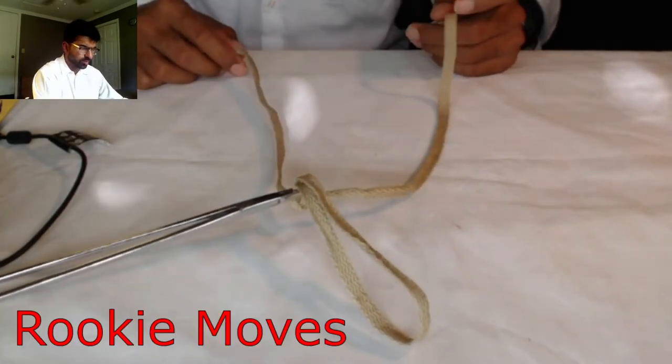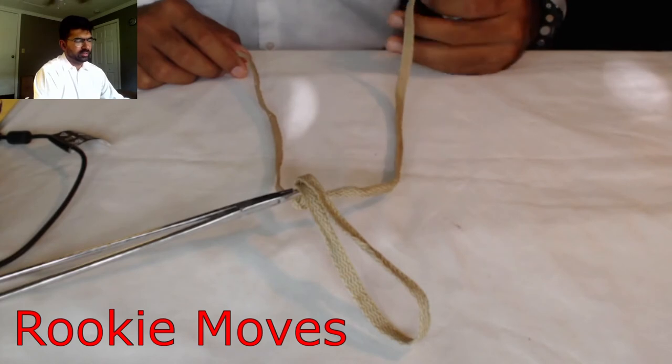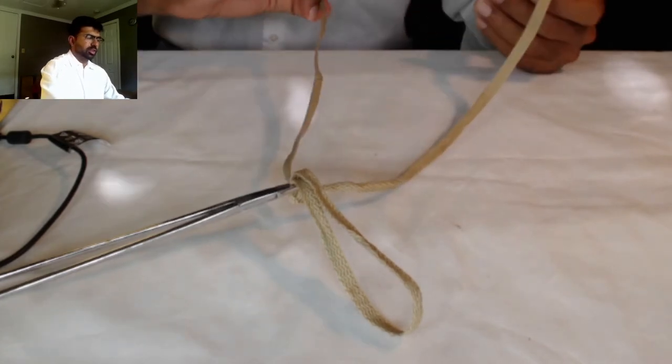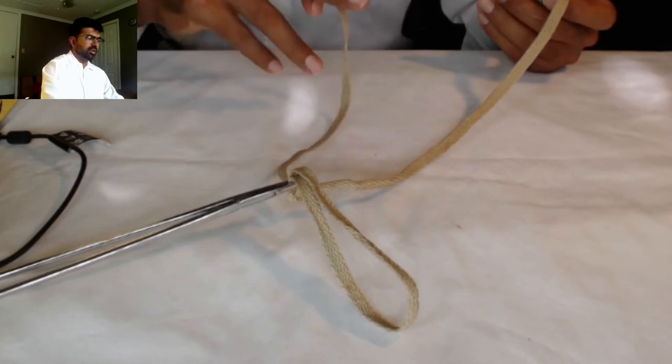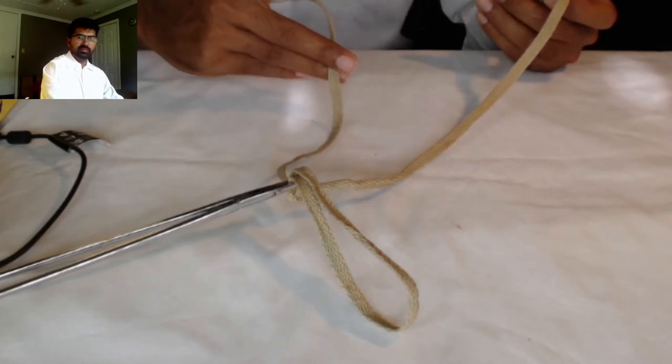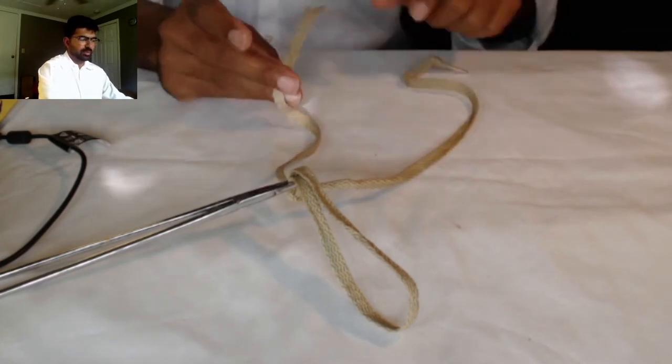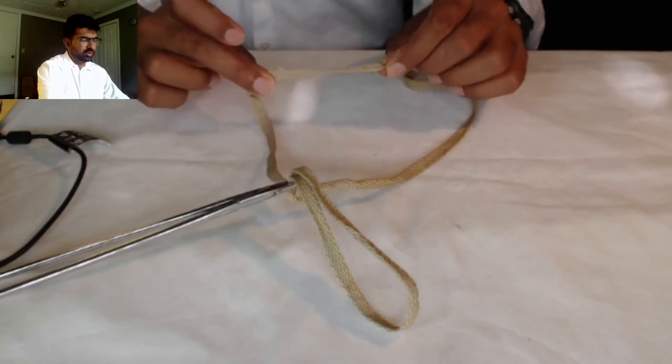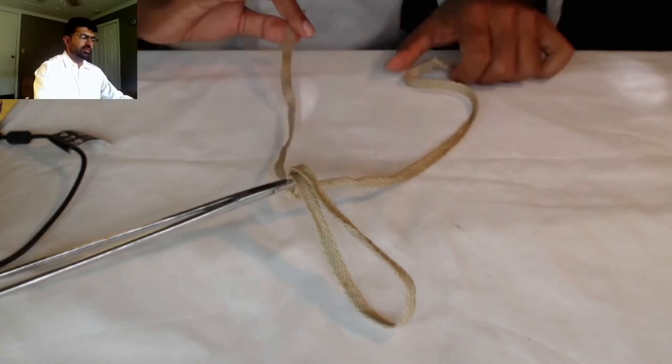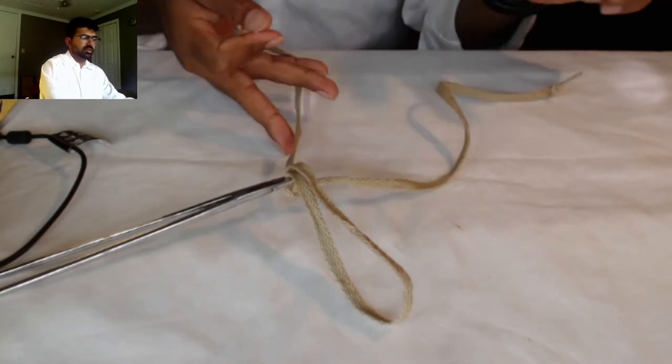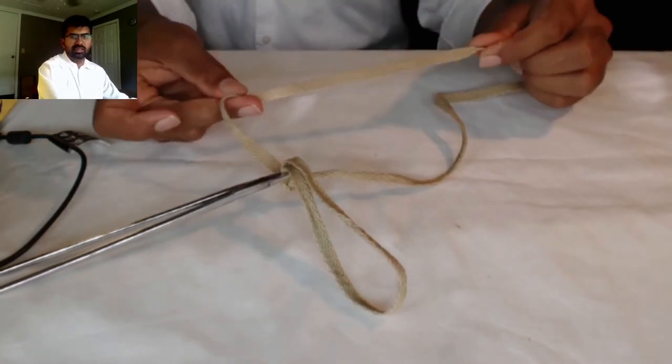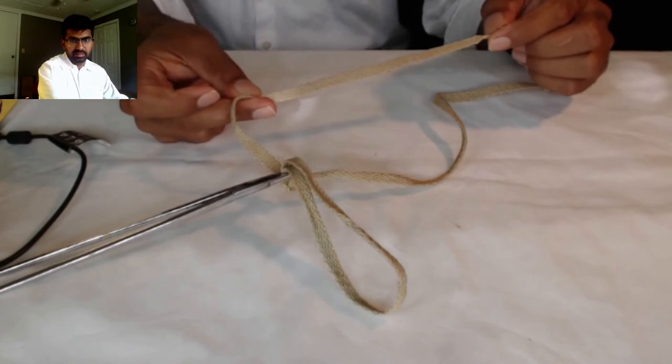Now, the most common location that I see people make errors in this is what they'll do is instead of getting the full hand roll out, they'll go and just grab for this. And look what happens to the distance. It's very short distance that you actually travel versus if you let it wrap around your hand, you notice and you regrab, notice the distance that you've traveled. It's double that distance.